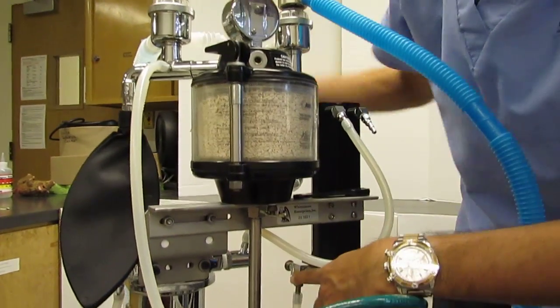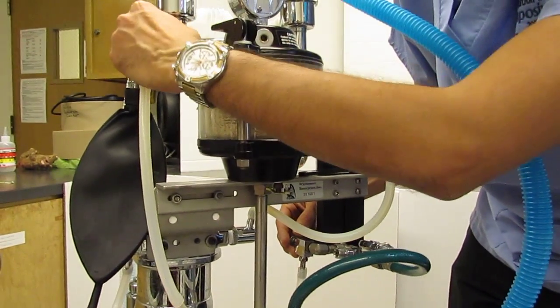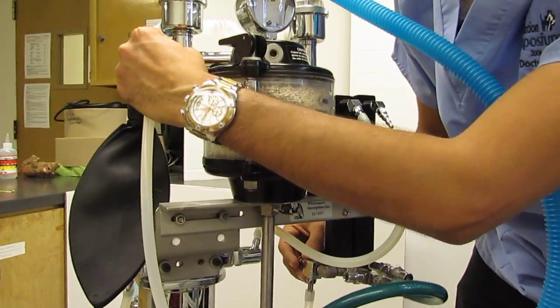That's what I meant by this button bypasses the vaporizer and sends air, or oxygen, I should say, directly into the patient. Okay?